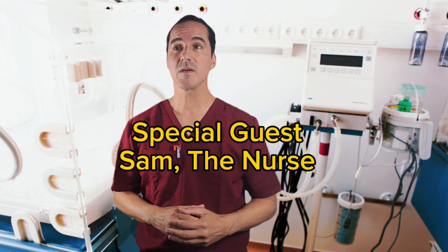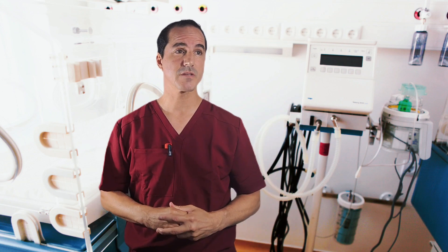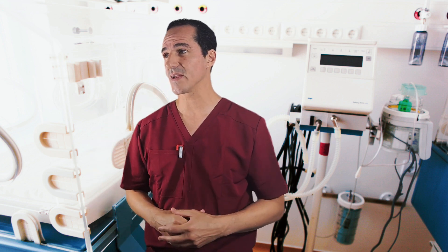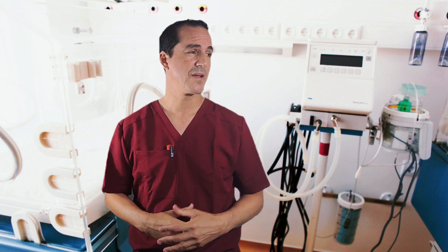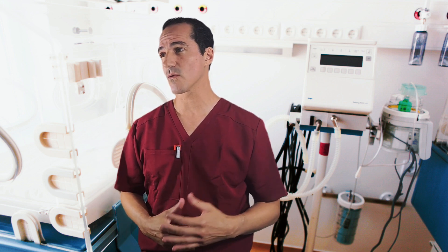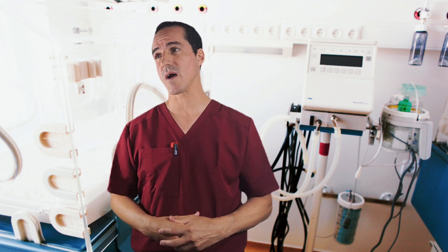Good morning everybody. Why don't we go ahead and get started? So this is a baby who was born full term who has Meconium Aspiration Syndrome. The baby has already been on mechanical ventilation for a few hours. The settings have been going up and up and up, and it looks like we're still getting worse. The sats have been sticking around the 80s for a while now.